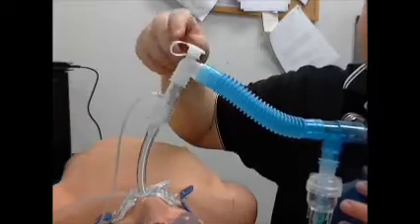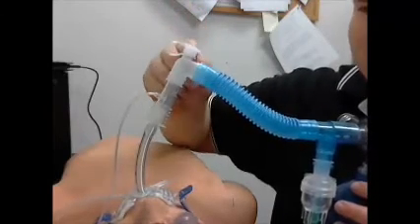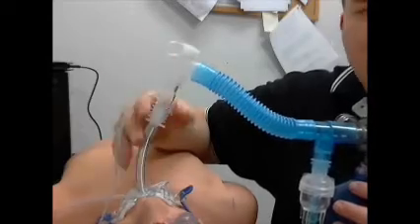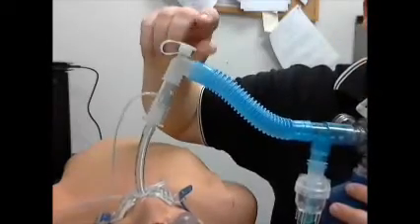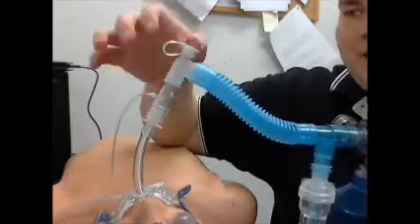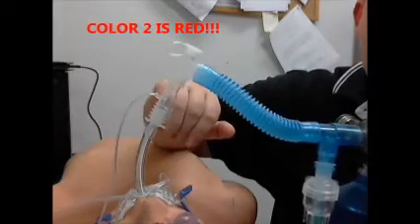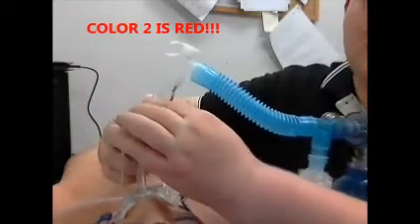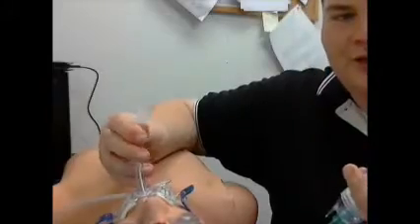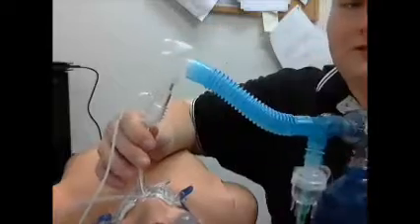The other piece to this T that's a little different from what we're used to is this cap right here. If you take this cap off, it's just a hole cut into it — it's made to suction down the tube through there. You can use it if you want to, but it takes a lot of force to get it off and when you do it's kind of loose, so you have to hold onto it. You're also going to have to suction past the little filter line inside of your capnography. So it's better to just disconnect the tube right here at the capnography, take the capnography with you so we don't get it all gunked up, and suction directly down the tube. When you're done suctioning, just replace it and continue on with your bagging.